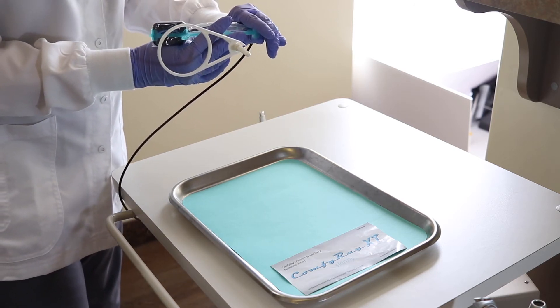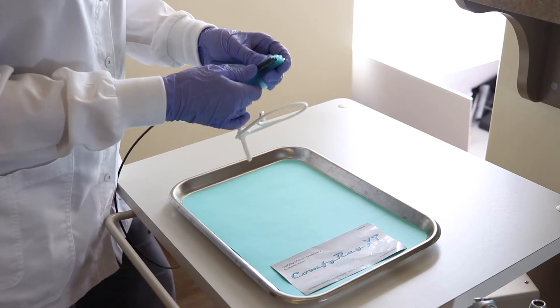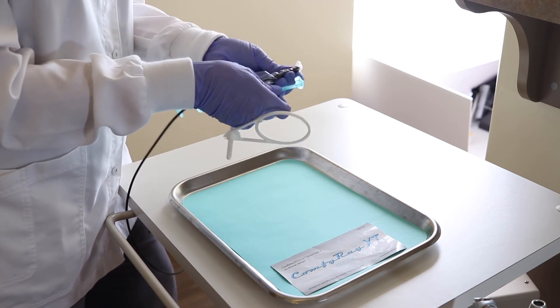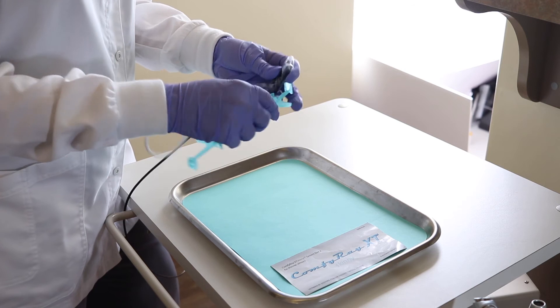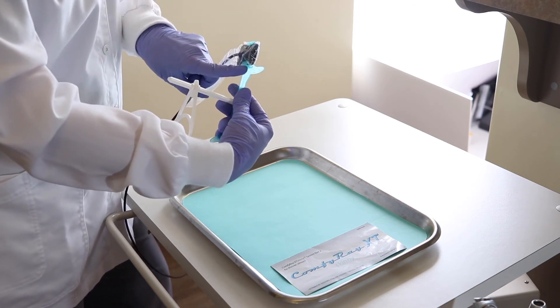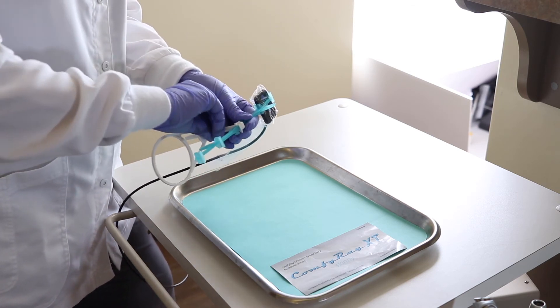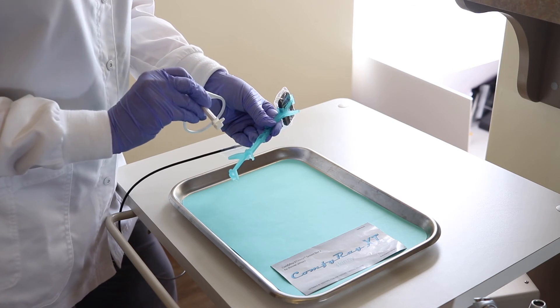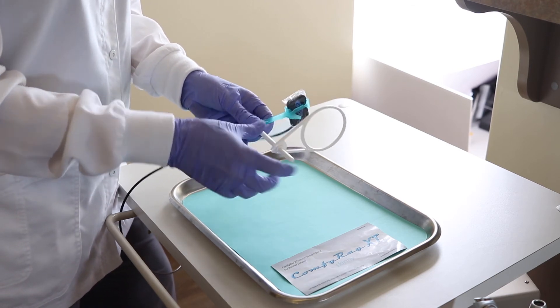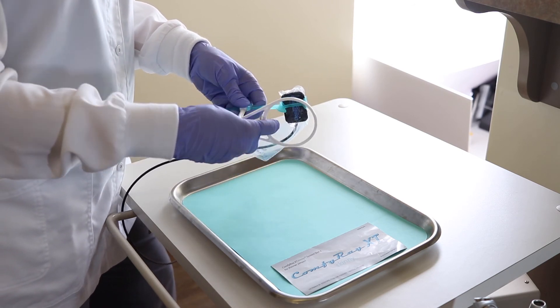Now all of your posteriors are complete. You're going to remove the sensor from this position and slide it over to the other side to take your anteriors. I like to pop mine into the deeper edge of the sensor and clip it in. You can also slide it, and then you will remove the rod with that little pin and flip it over to the other side. If for some reason you end up putting it on backwards, you can always just slide this ring off and put it in the correct position.